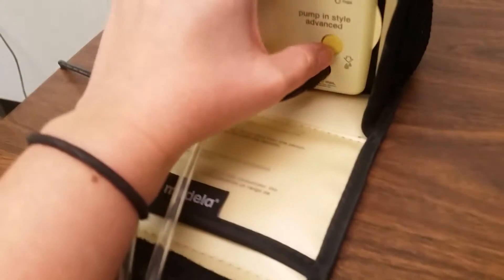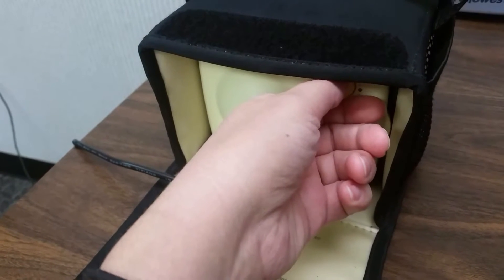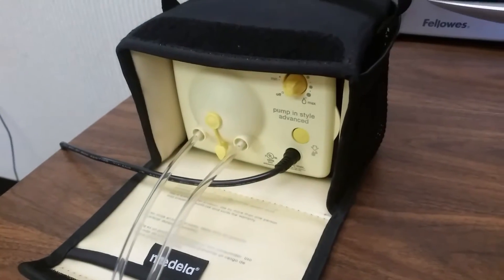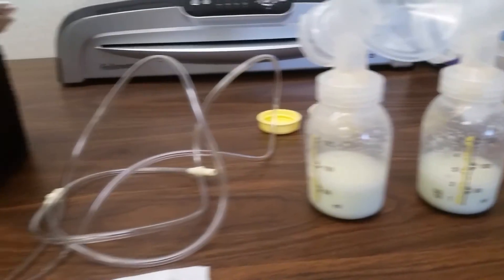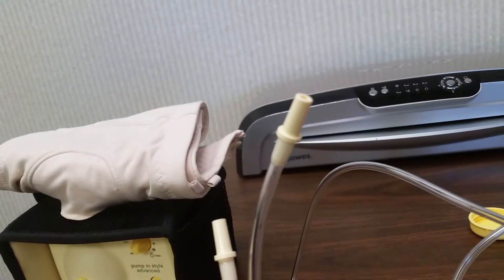Milk is stirred in. Milk has stopped coming out, so we are going to disconnect these. Let those air out. There's the milk that's been pumped. We're going to keep the motor running until all of the condensation has been sucked out.